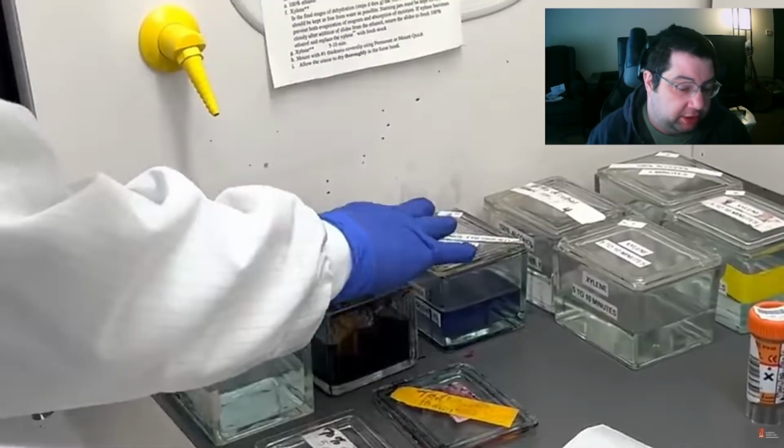Place I worked before, we had dozens and dozens and dozens of what are called ova and parasite tests for different patients. And it's a lot of tech time. It's a lot of work. It's looking at a microscope 8 hours a day. It's a ton of work. It's interesting when you get cool stuff, but a lot of time it's pretty benign or pretty typical stuff.